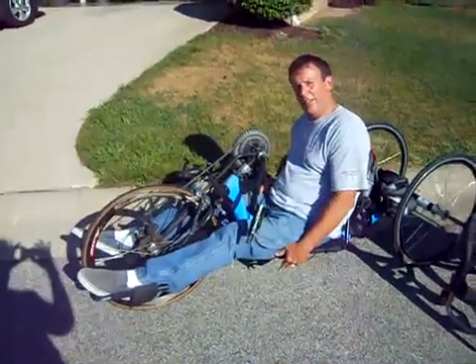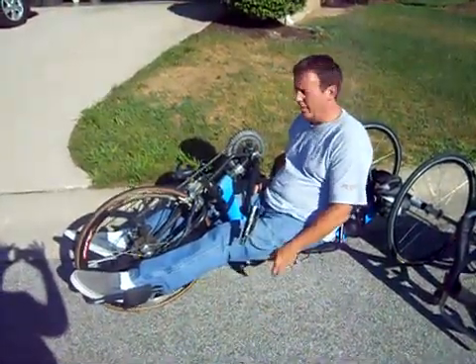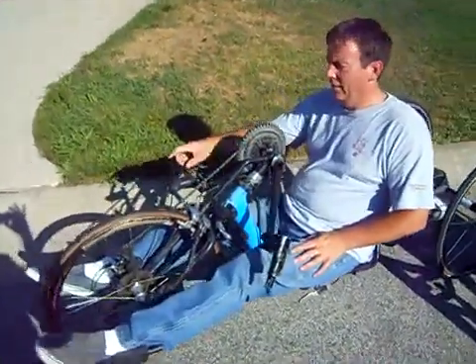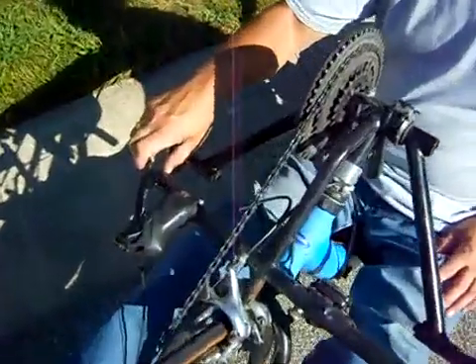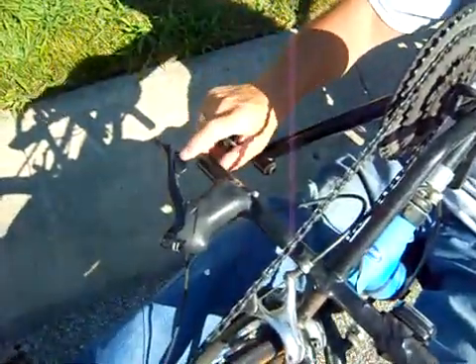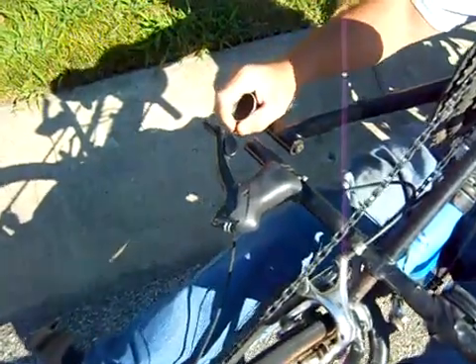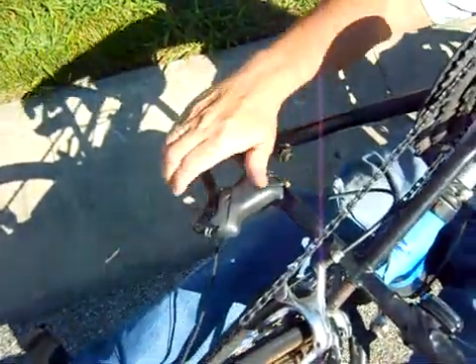You've got a brake down here — pull up on that for one brake. You've got another brake and your shifter's over here; pull in on it for the brake. You can catch that as your hands are going around, just catch it, or take your entire hand and grab that.